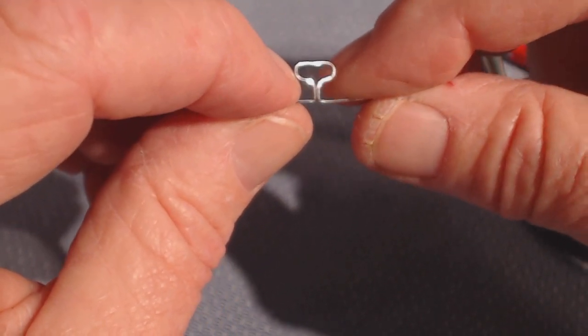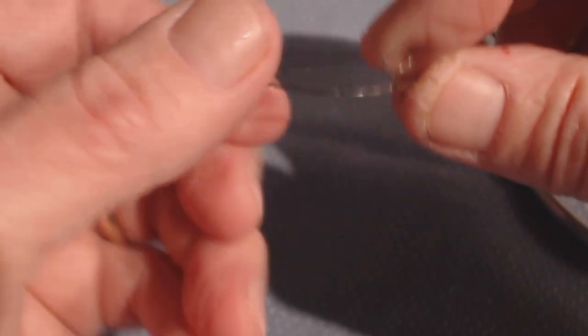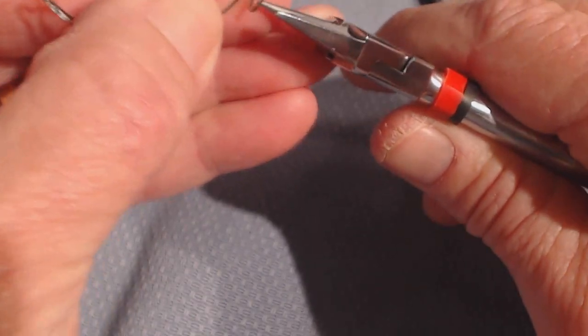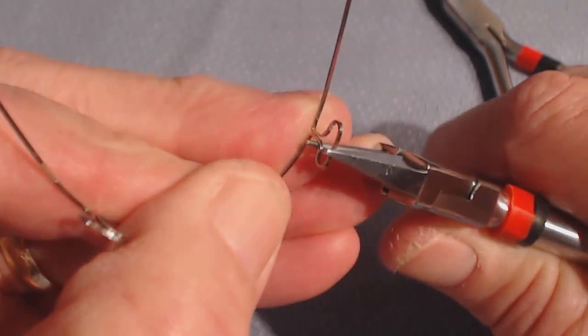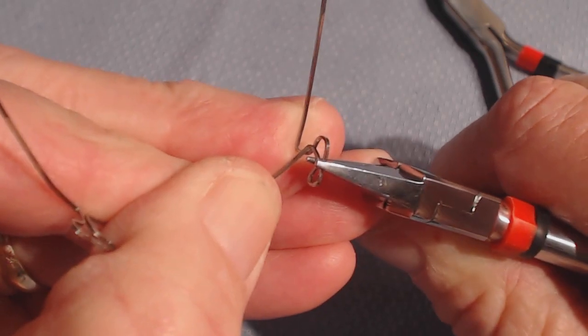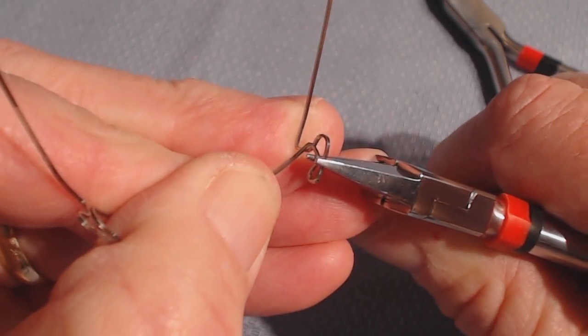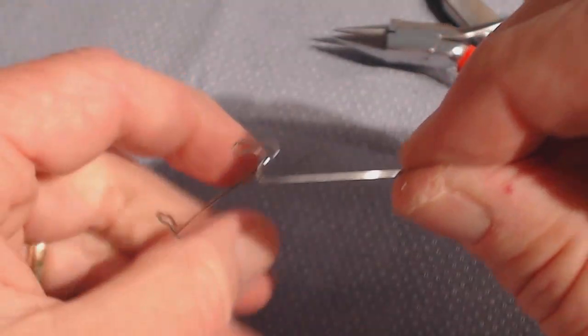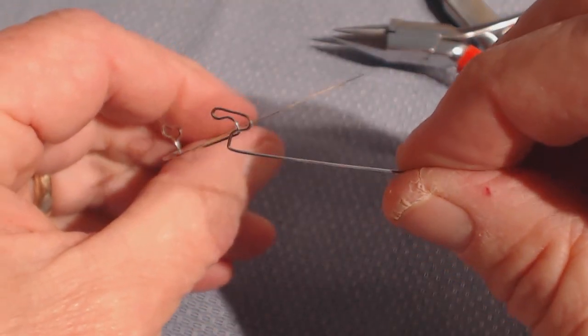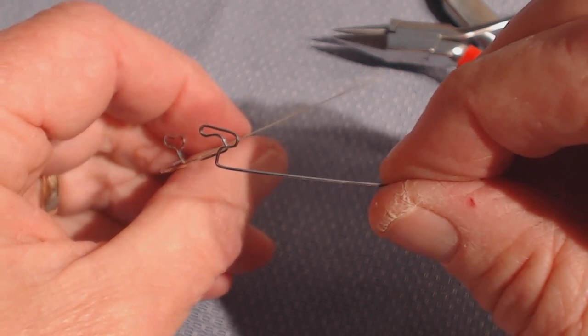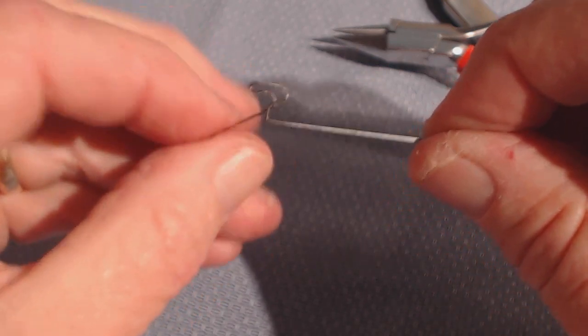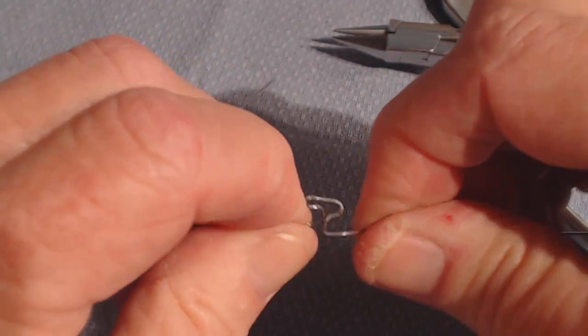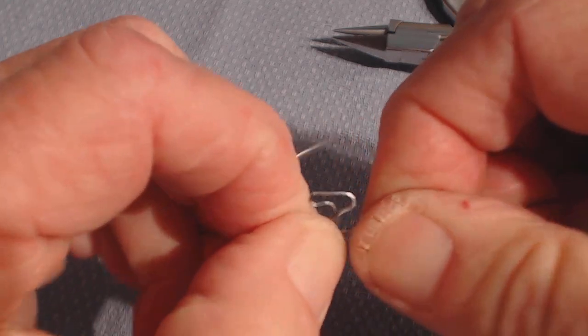When the patient comes back, you see you've made it way worse, not better. Let's see if I do that. This is probably going to destroy the arch wire, but that's okay. When I squeeze it together—did you see that? It went super fast, like I couldn't control it carefully enough. Look at what happened. Instead of intruding, I'm extruding the incisors by about four to five millimeters. You can imagine this would be a disaster. But intra-orally in the mouth, it doesn't look too bad when you make that activation.